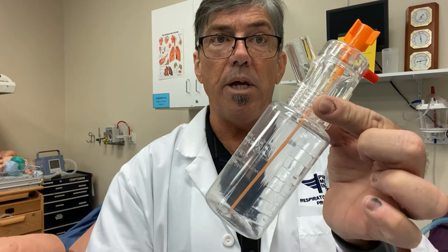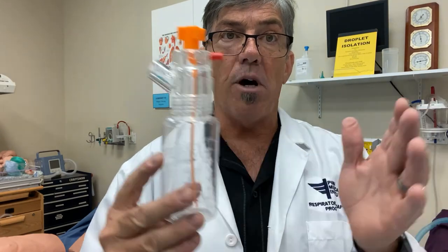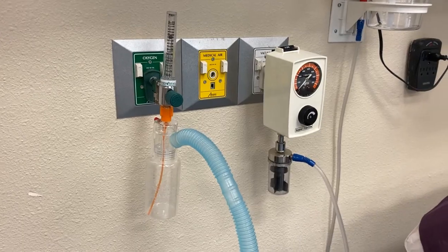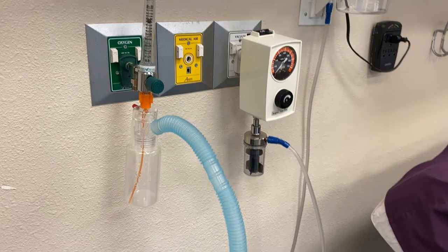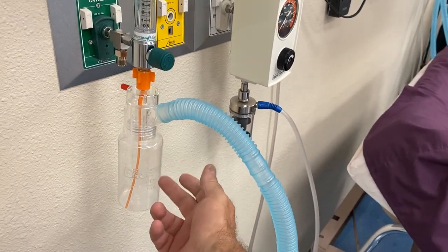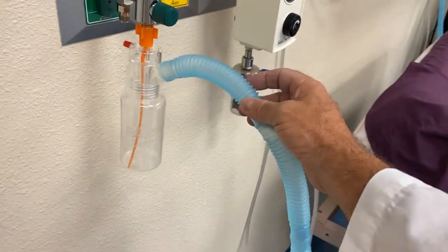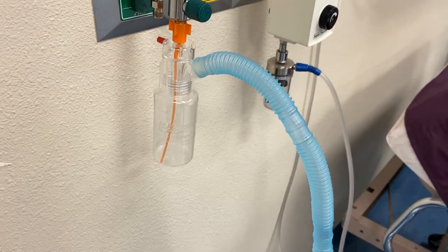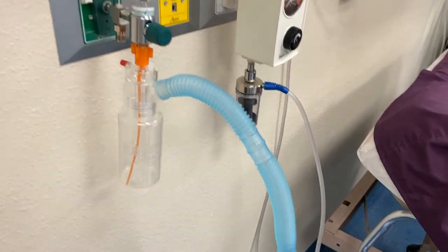Here's the Hope Nebulizer. Next, we're going to connect this up to the flow meter and demonstrate on a pull-back shot what the system would look like. There's the Hope Nebulizer connected to a simple flow meter. But again, there is no FiO2 adjustment on the Hope Nebulizer, so you would only be getting 100% source gas, which would most likely not be appropriate.